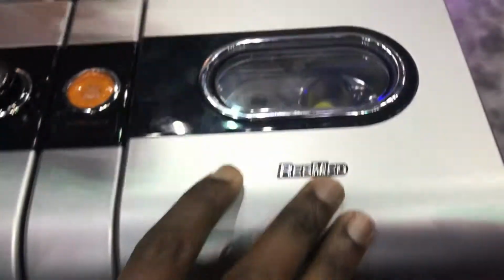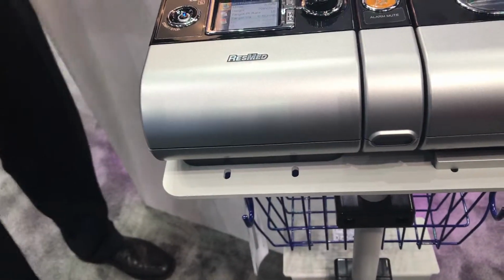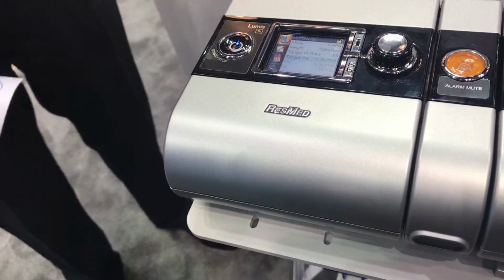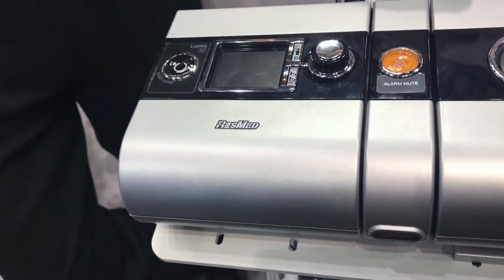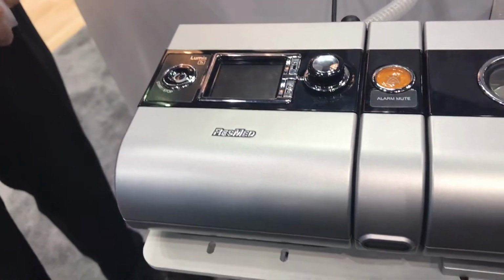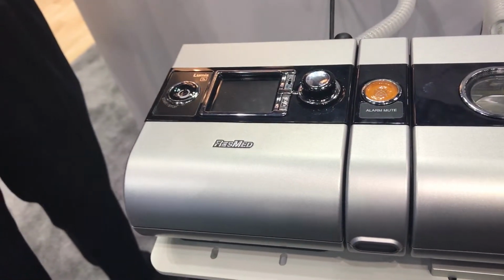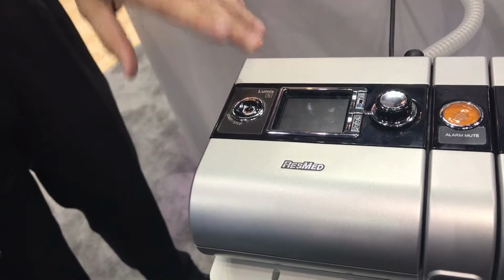And that's where we have the humidifier, right? So you remove this, you put the water in. The higher the mode setting you use, probably the more humidification the patient will need. It won't alarm if you run out of water, but the heater unit will actually turn off, so it won't burn itself out. Okay, great. The water chamber filled up with an average leak and patient breathing rate should last 8 to 9 hours. So it should not run out for you.